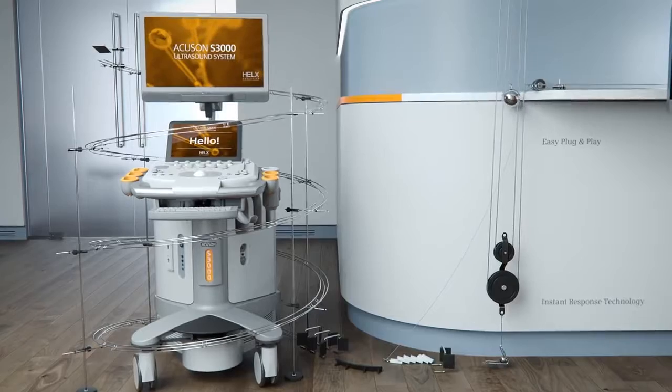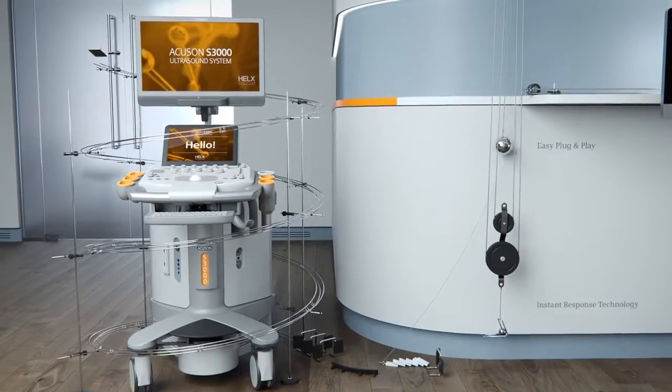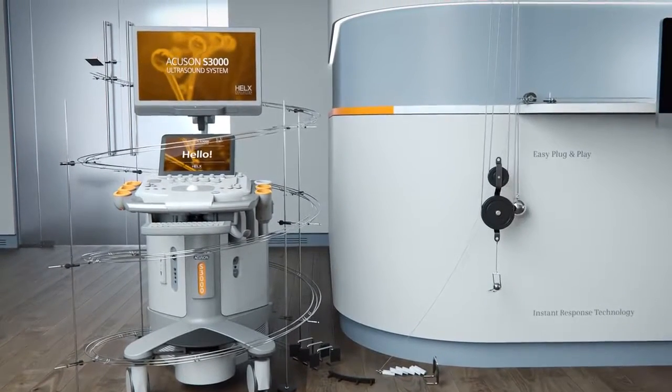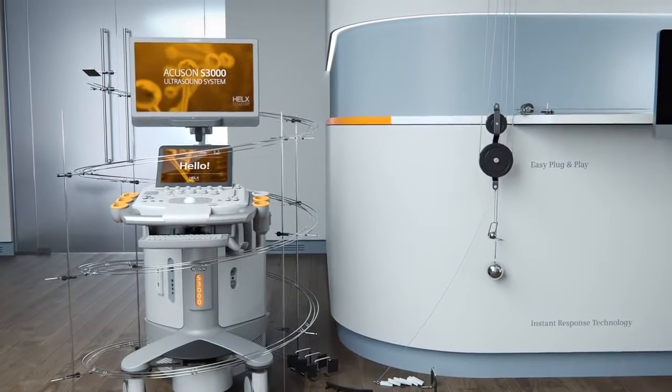Enjoy an easy-to-use touch display with instant response technology for precise key selection and intuitive browsing.